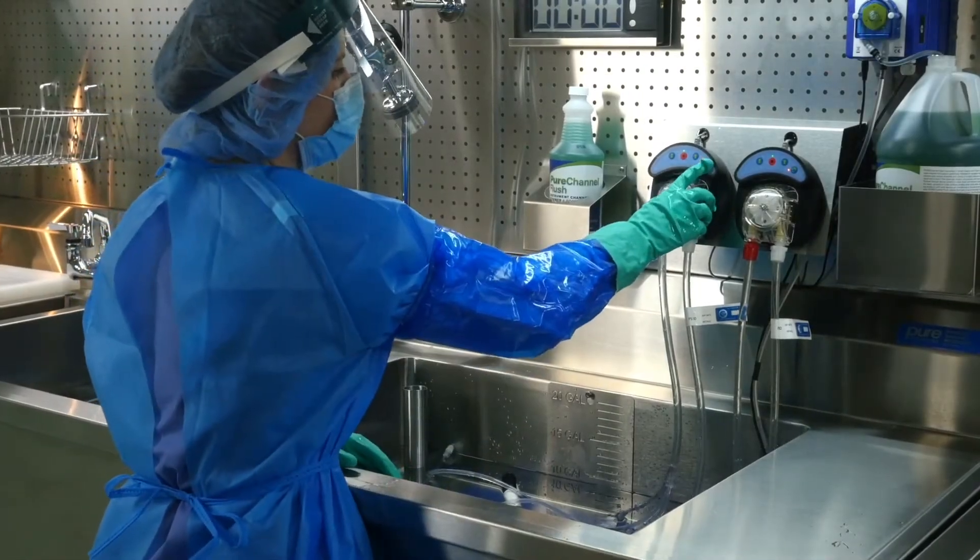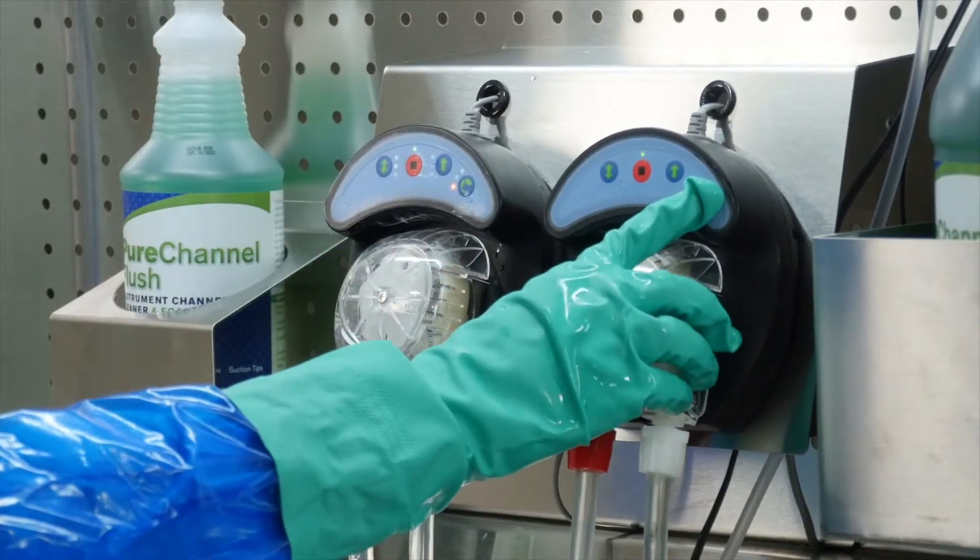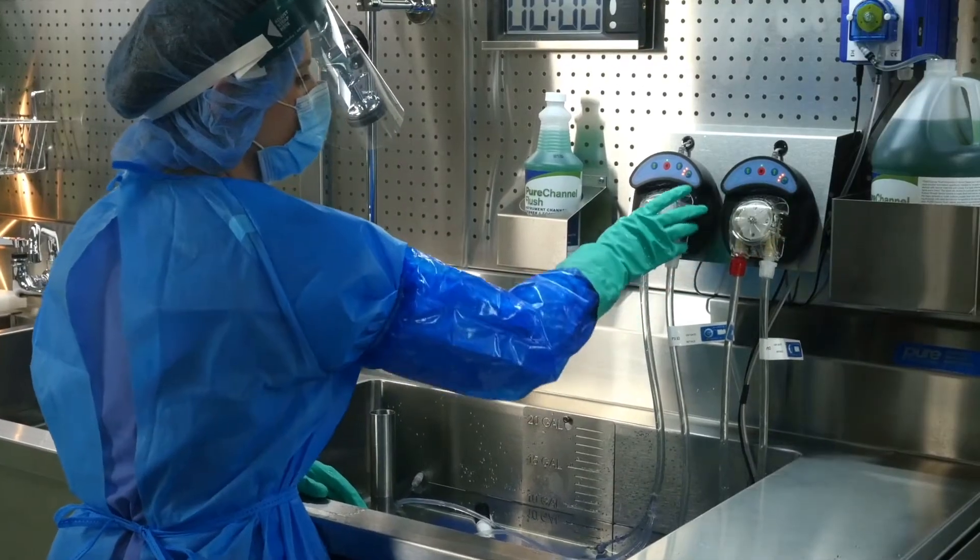Before flushing instrumentation, make sure your pump is set to the right speed. The speed button is on the far right-hand side of your pump and looks like a radio dial.